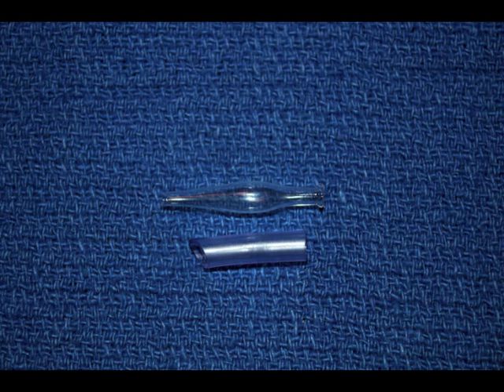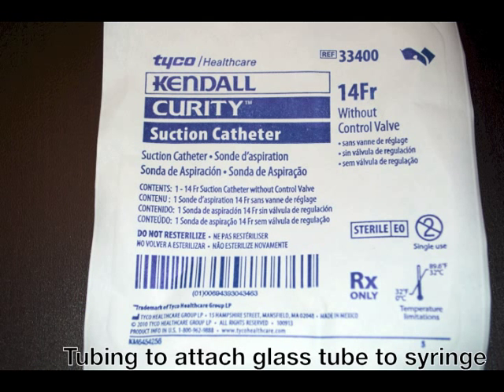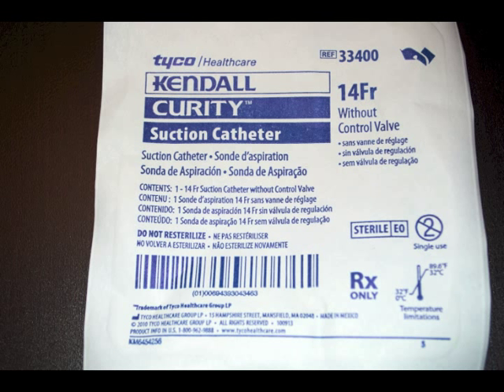Here's a picture of what the modified glass-Jones tube looks like. This is made by Gunther Weiss in Portland, Oregon. It's an FDA-approved Jones tube that has a slightly dilated reservoir that helps with the fluidics and graft handling. You can see the small piece of tubing — that's just a piece of 14 French nasogastric suction tubing that I've cut in order to join the Jones tube to the syringe. It's a very easy device to prepare, and this is the tubing I'm currently using. It's readily available and quite inexpensive.